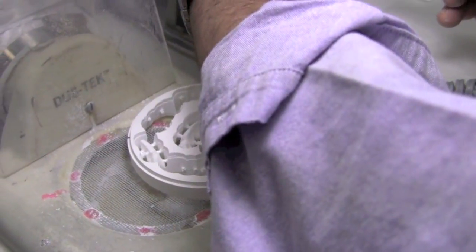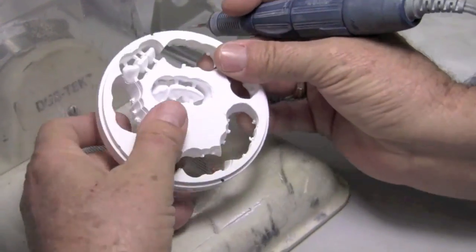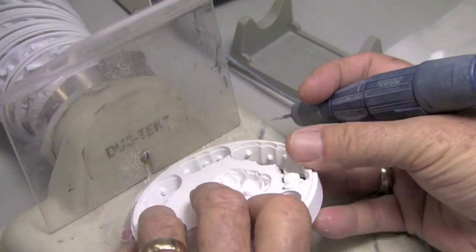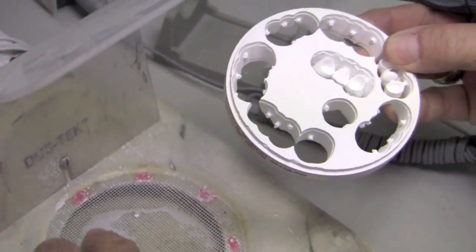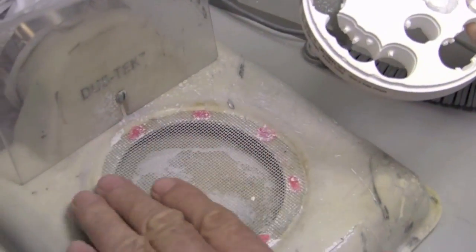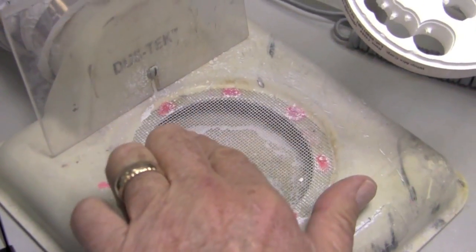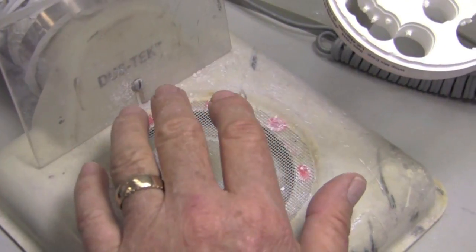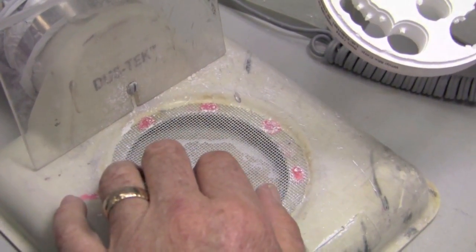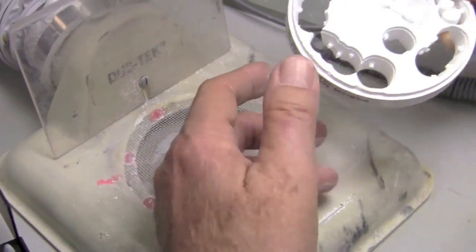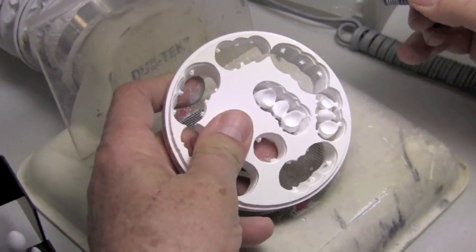Because even though we can mill with a 0.3 tool, it really doesn't give us the kind of sharpness that I like. But that's a personal thing. And so I use probably half speed on my tool. And also just make sure that you have something supple and soft beneath you. I use this nylon screen to basically catch my units as they drop because they will drop.